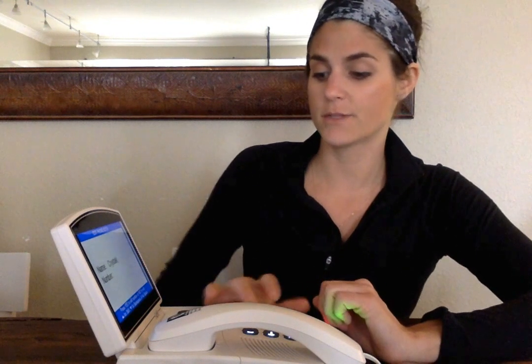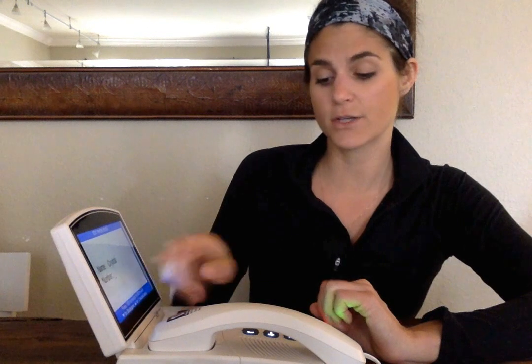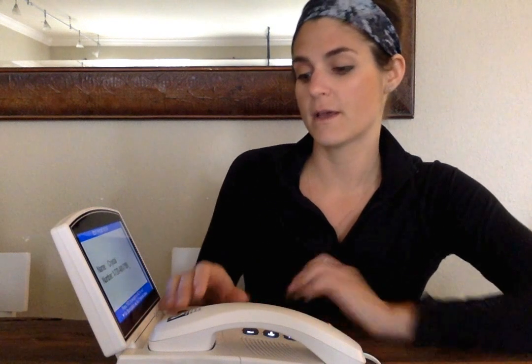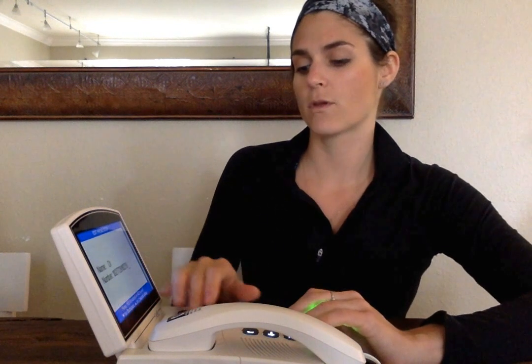And here's my name, and then I'm going to hit yes to go down to numbers and put my number in there and hit yes to save. So you could do this all day. You could just add everyone from your phone book. I'm going to put another in here as doctor, just for good measure, to show you what it'll look like if you add all of these numbers. Okay? So again, I'll hit save. It'll save it.